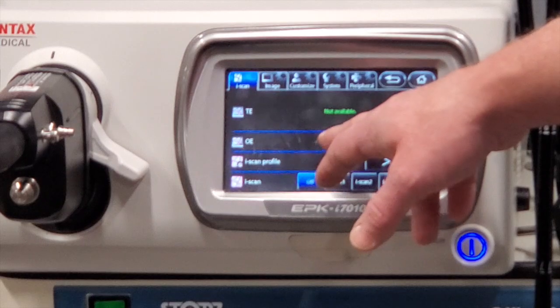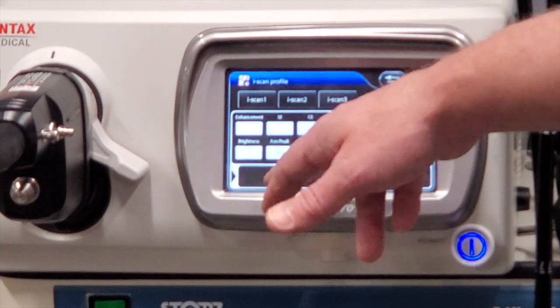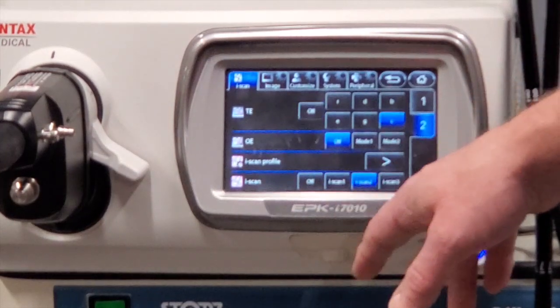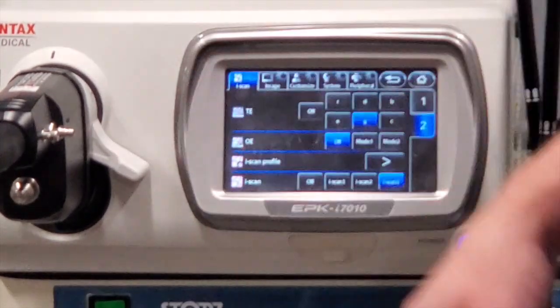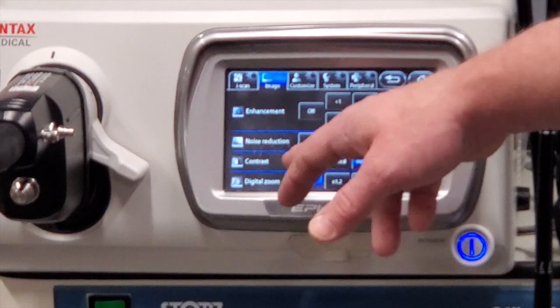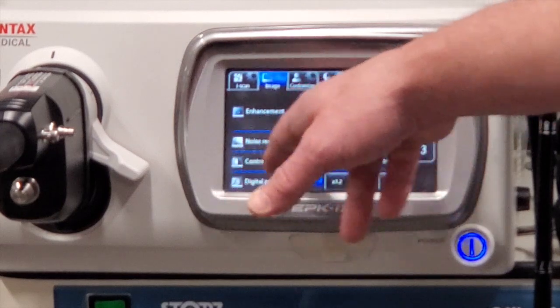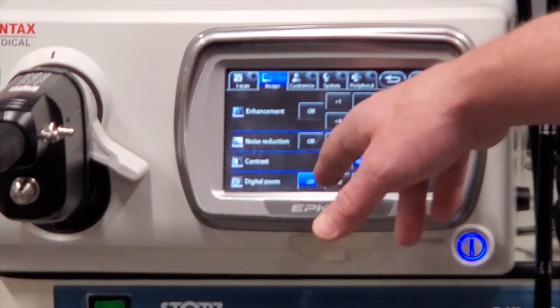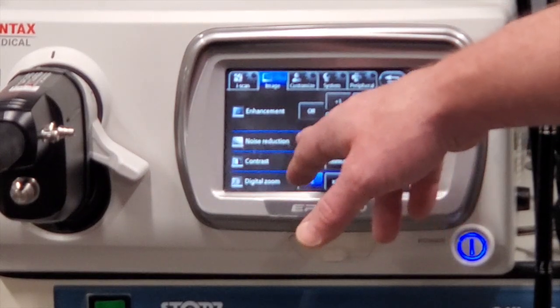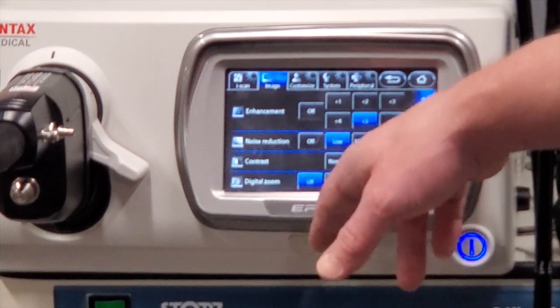Now we're going to kind of run through the iScan profile. iScan — if you turn it on and off: iScan 1, iScan 2 — you can't see the screen but it is making the changes. Leave it off. Under the image, an enhancement right now is set at 3, 4, 5. Hit noise reduction — set it from low to medium, now it's at high. Leave it at low. Contrast — leave it at normal.